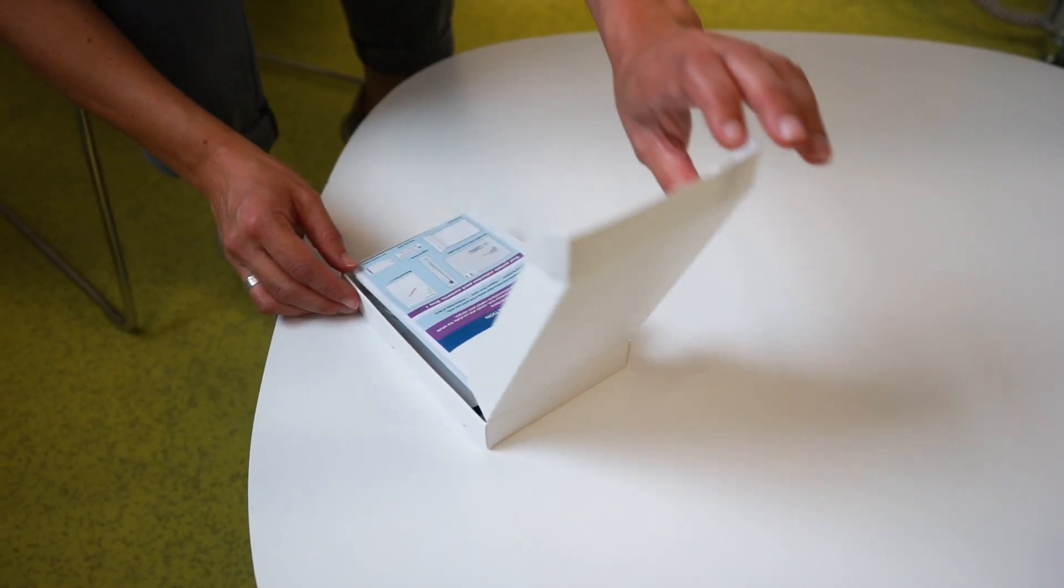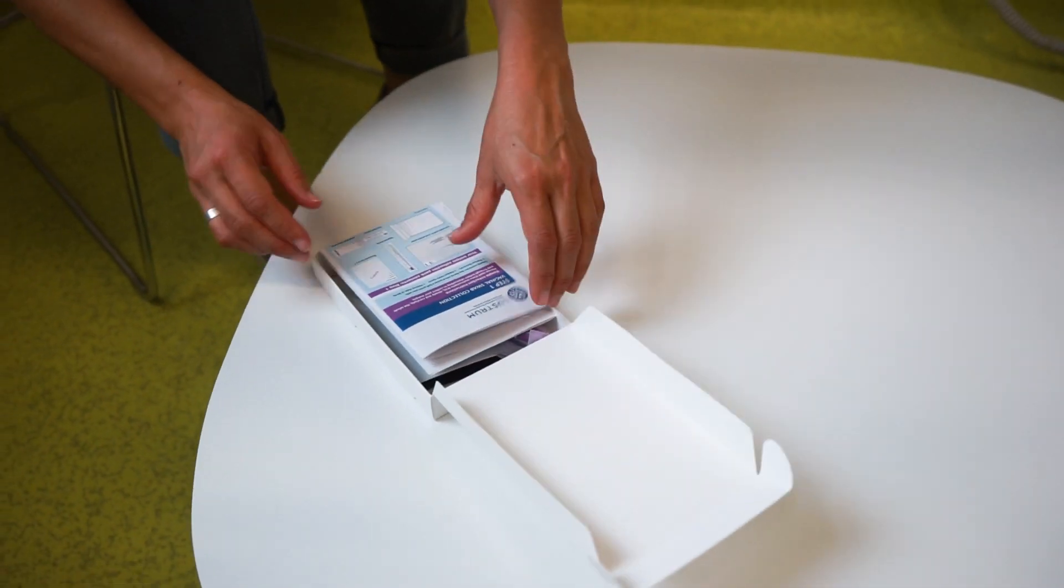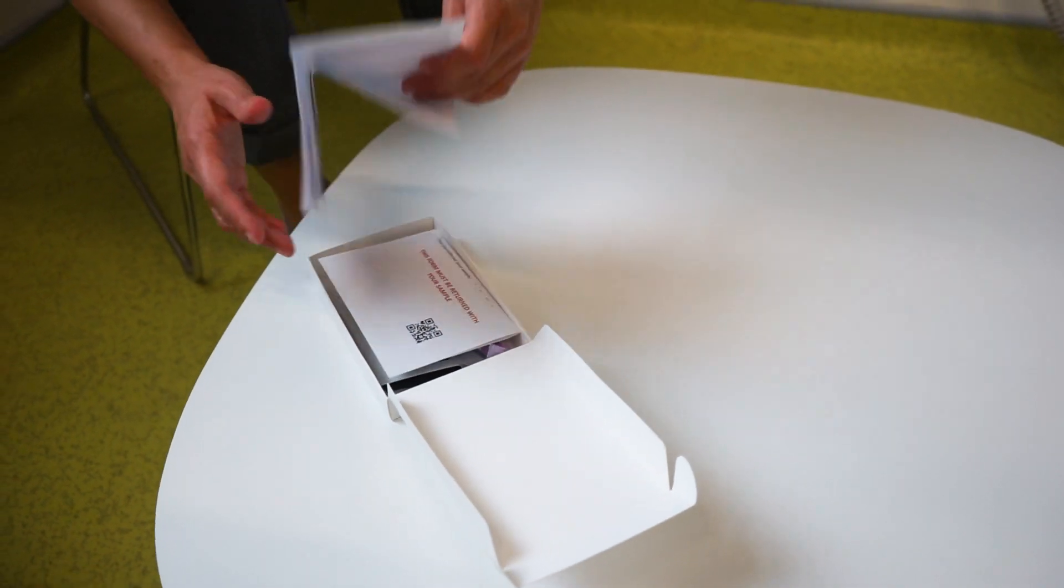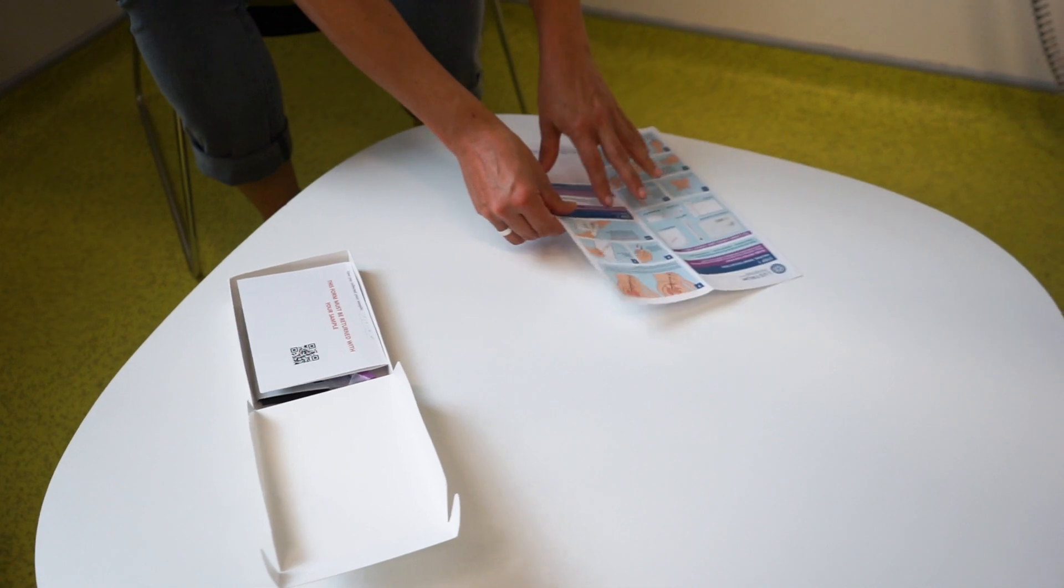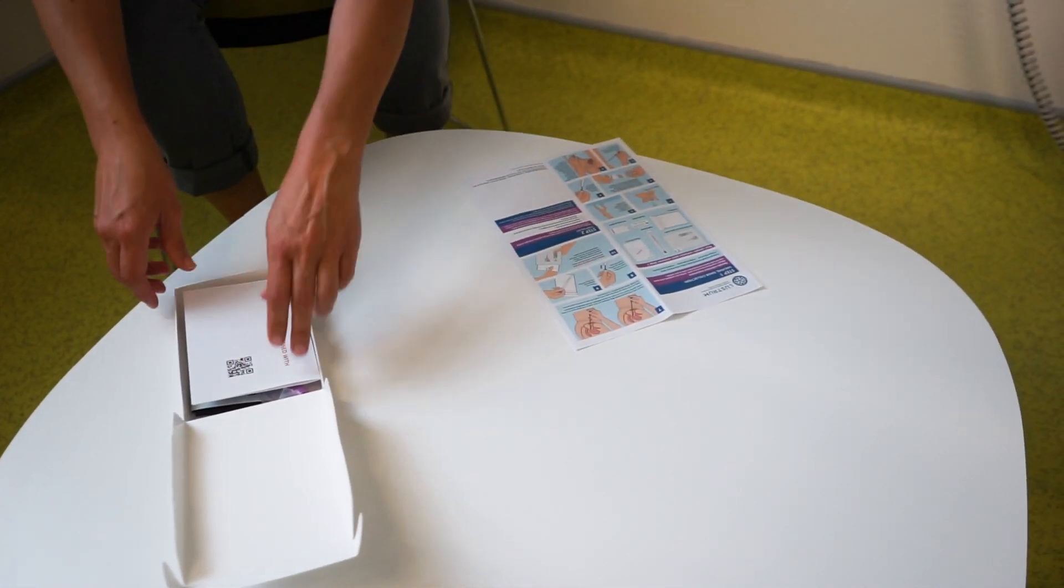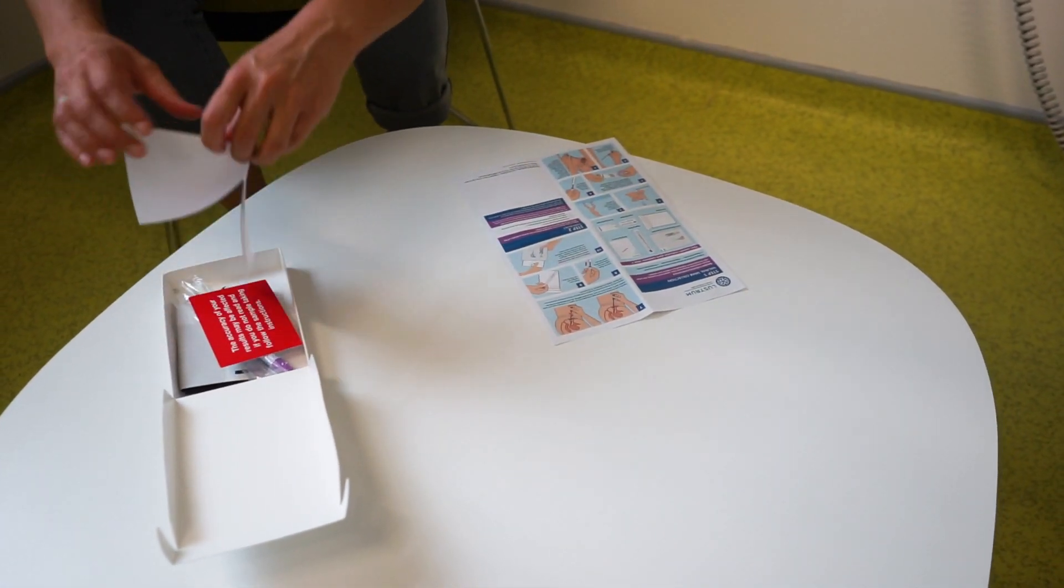When you're ready to take your vulvovaginal swab sample, pick up the sample kit. The first step is to check that you have the following items in your test kit and to read through the instruction leaflet slowly and carefully from beginning to end before you start.